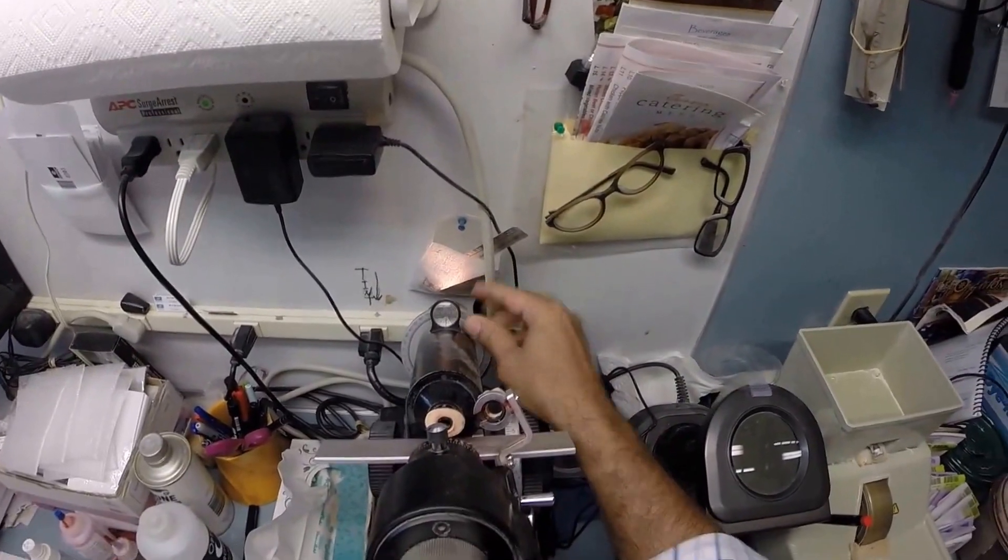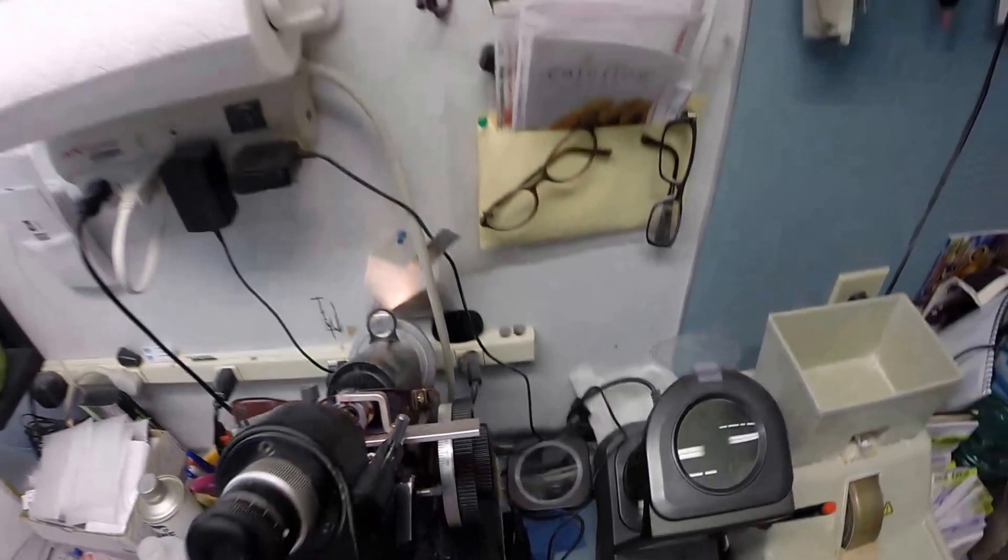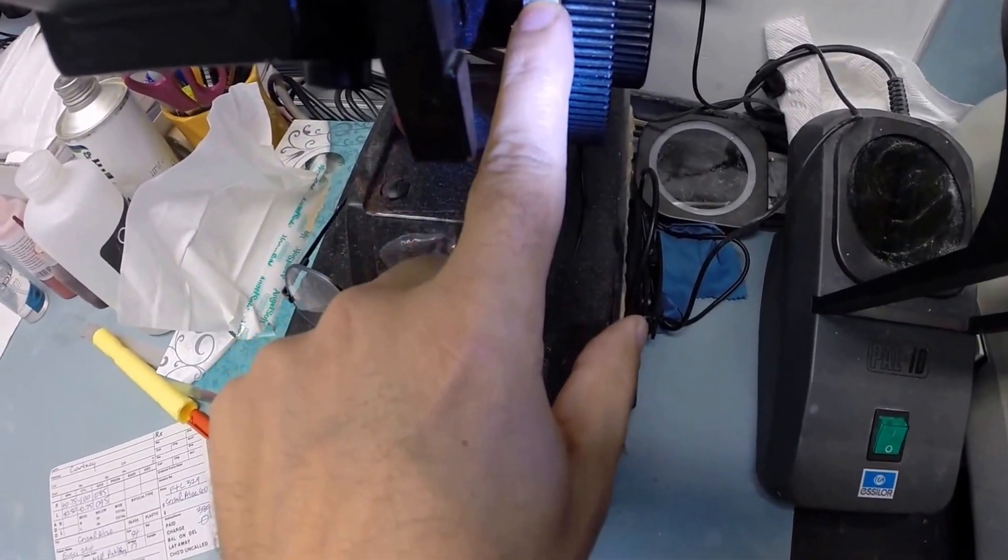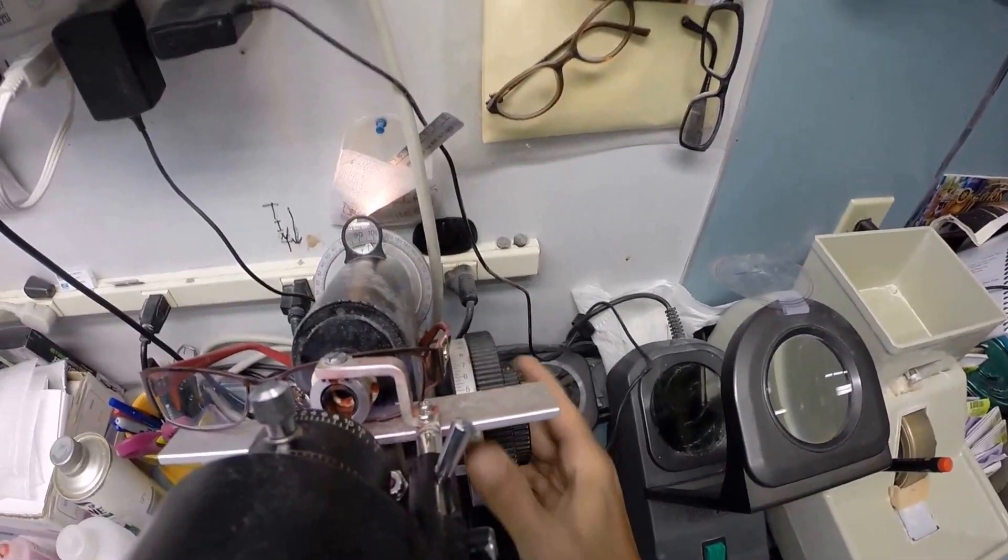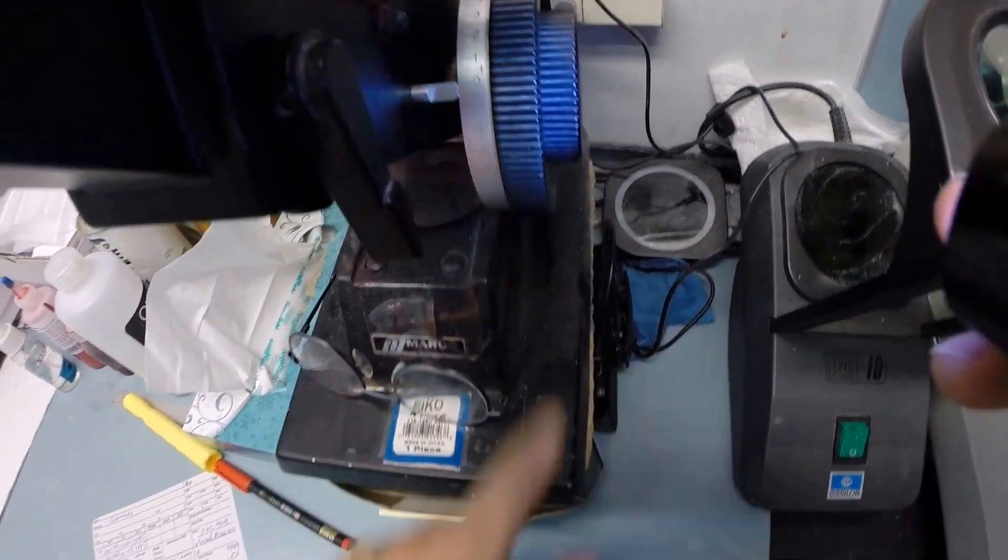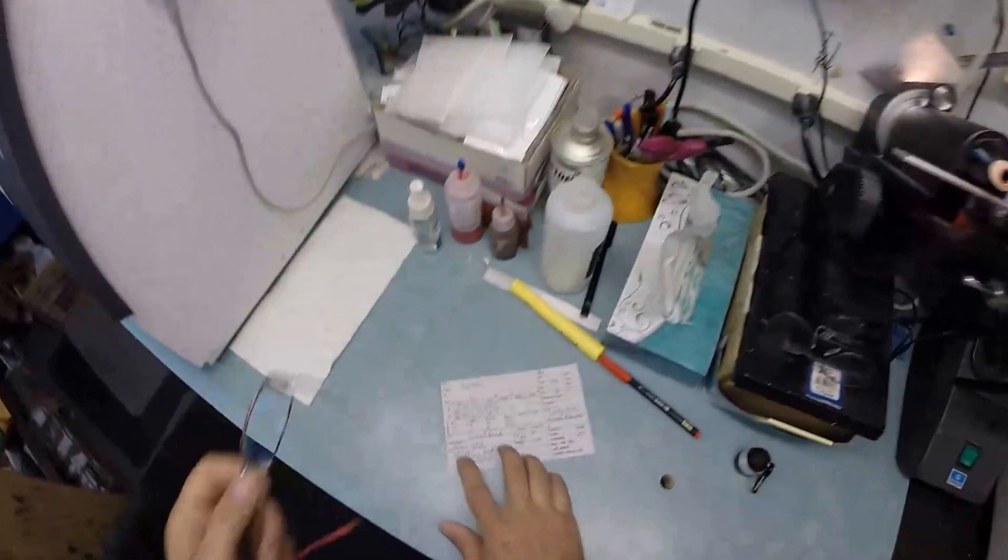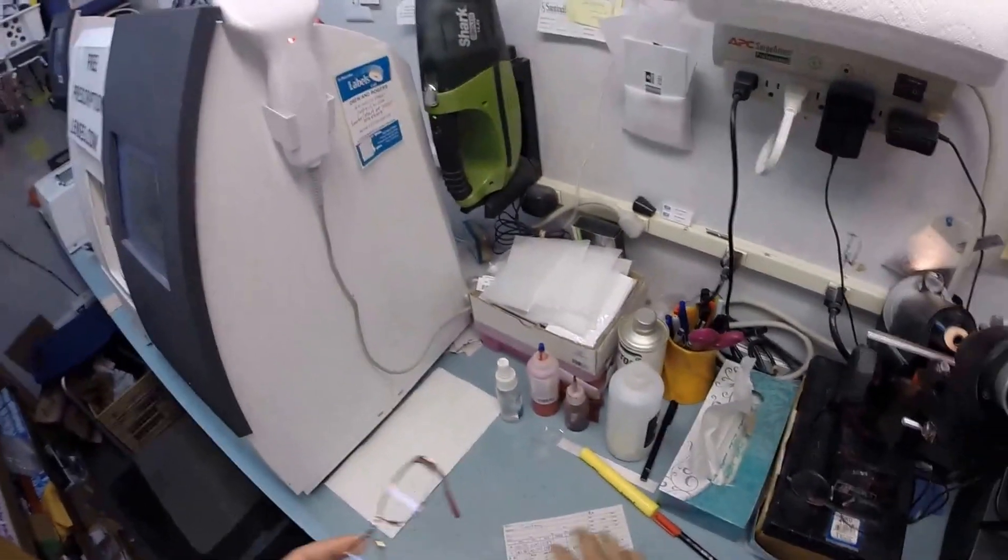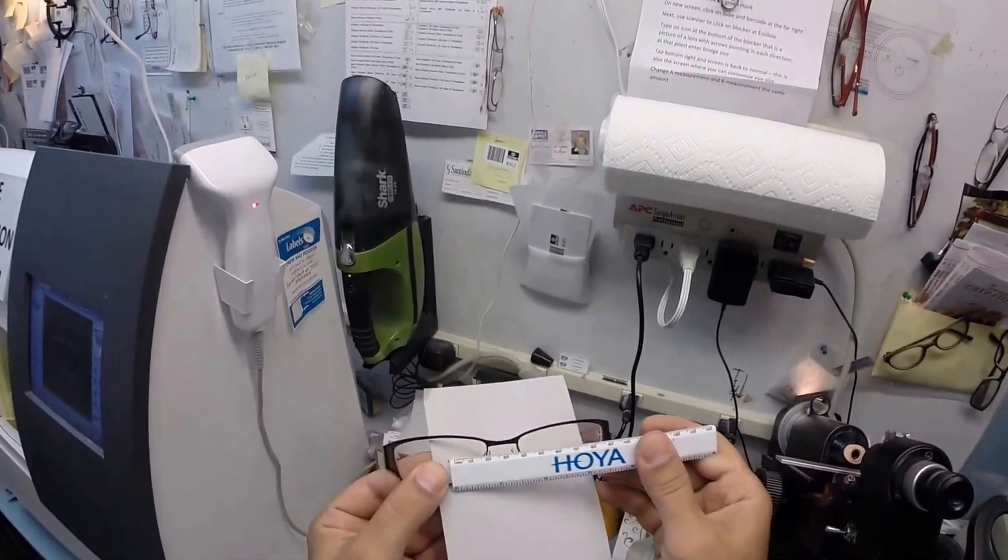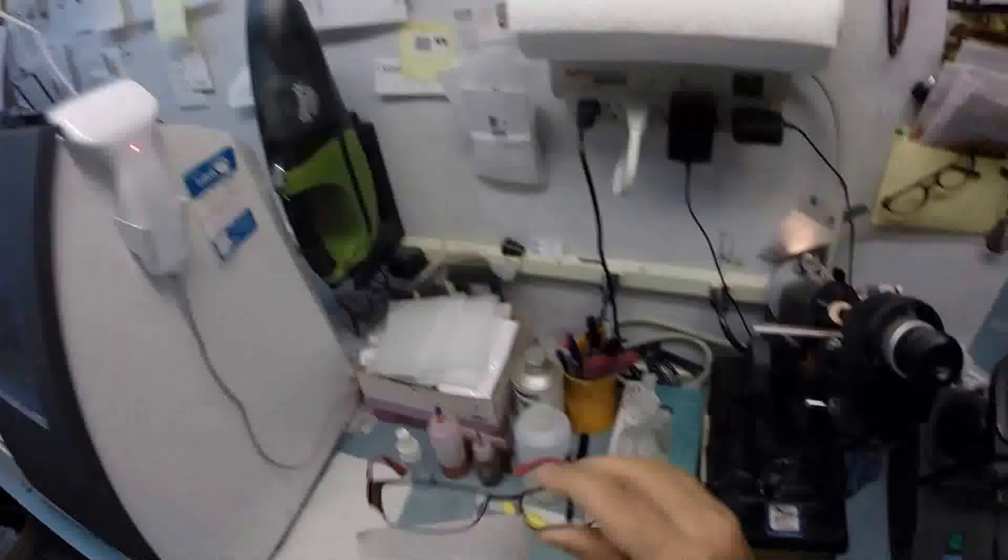All right. Spin the axis wheel to 95, that fine-tune knob for your astigmatism correction. But first, I'm going to check the spherical component of your prescription. And we're at plus 50. We're exactly halfway between zero and one. That's where you would find 0.5. You have three steps of astigmatism correction. So we end up at minus a quarter. So that is made perfectly. I couldn't have done any better if I made these myself. Now your pupillary distance 29 and 28 is 57. I'm going to turn the card over and place the PD stick against my thumb. Place the zero against my thumb on your right lens. And then we measure, we're getting 57. So that is made perfectly.